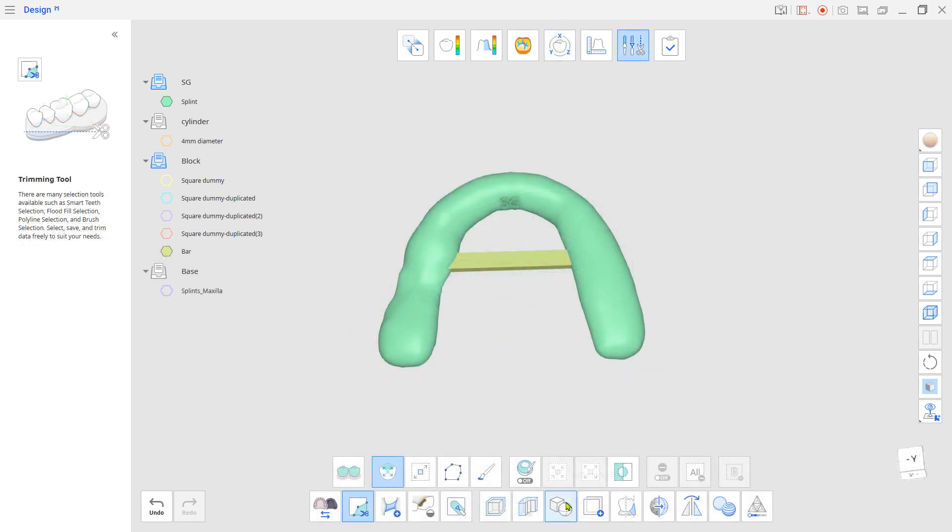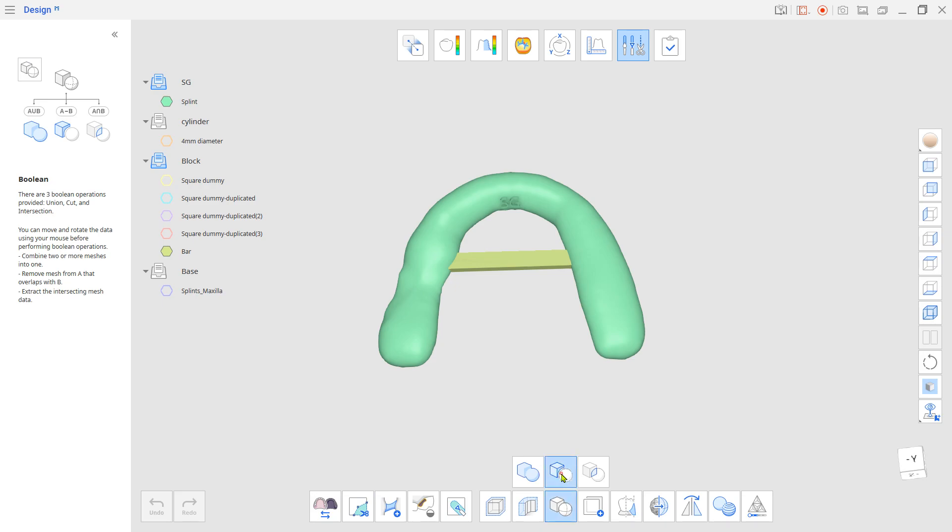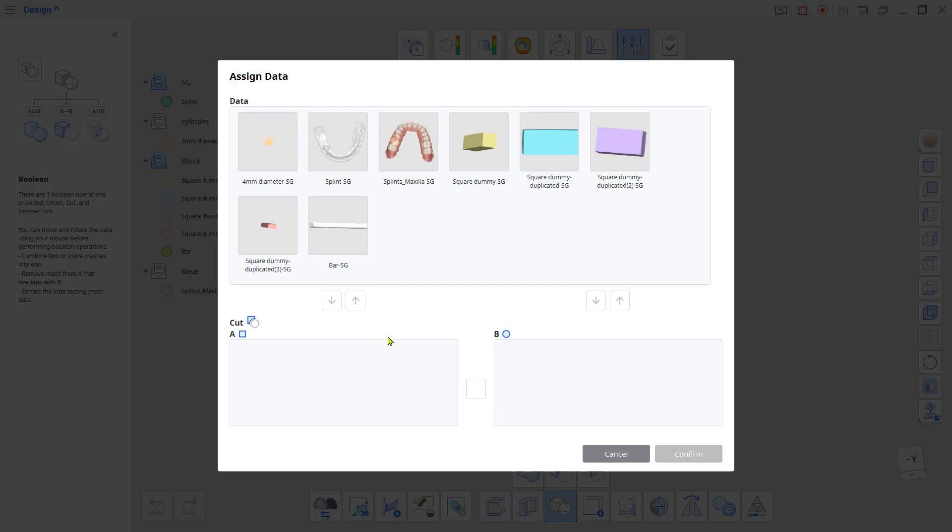Go to Edit Mode and cut Guide Tray with those located blocks.